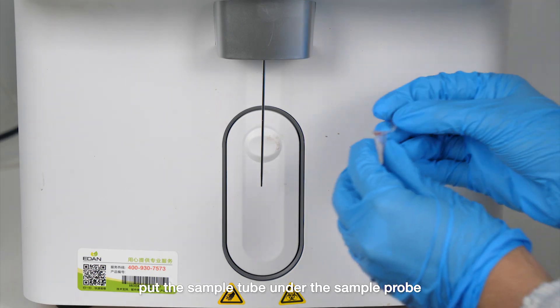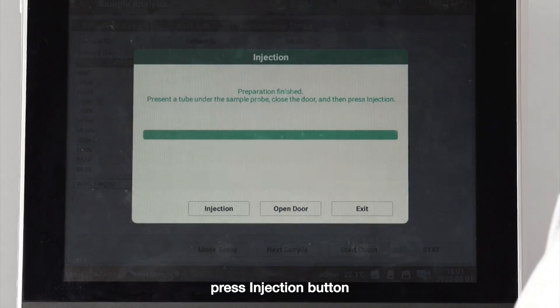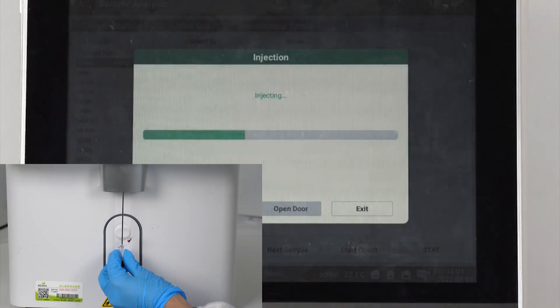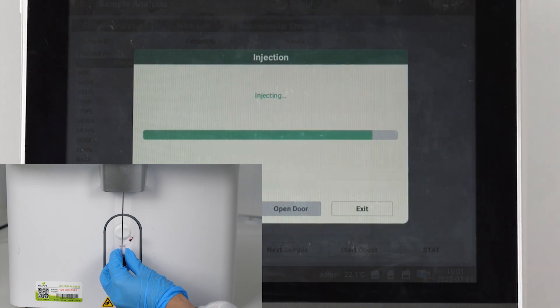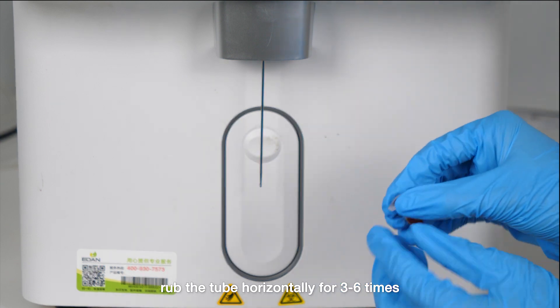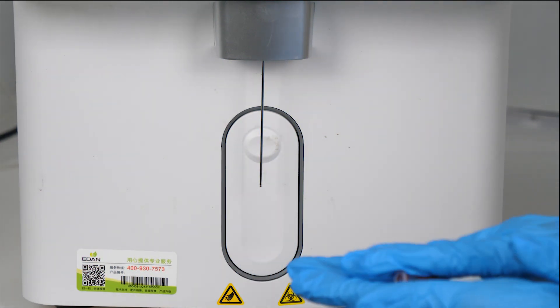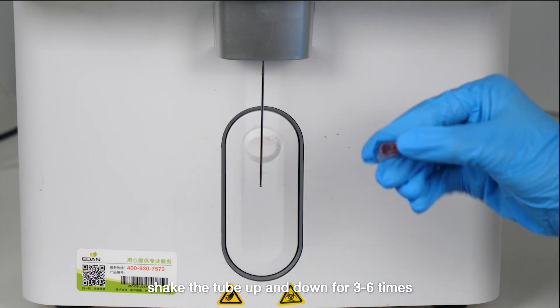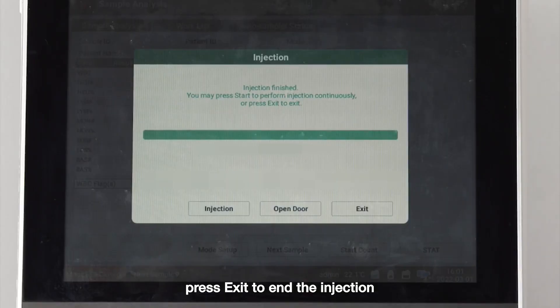Put the sample tube under the sample probe. Press the injection button. The analyzer will inject diluent into the sample tube. Rub the tube horizontally for three to six times. Shake the tube up and down for three to six times. Press exit to end the injection.